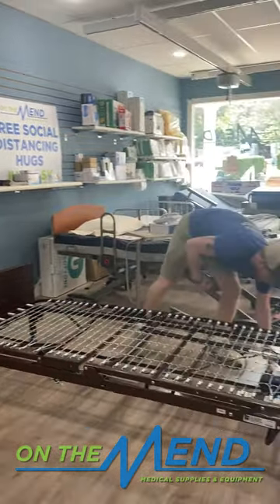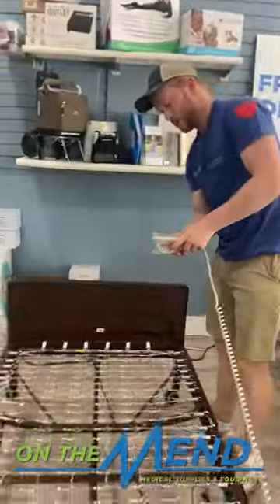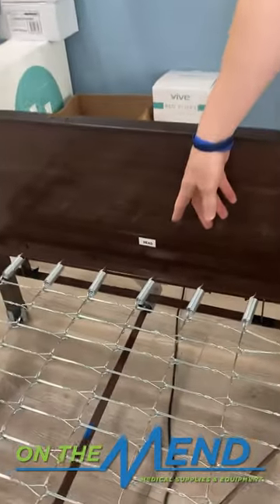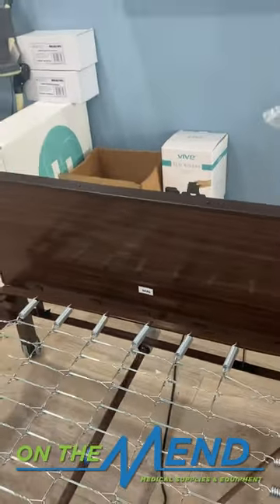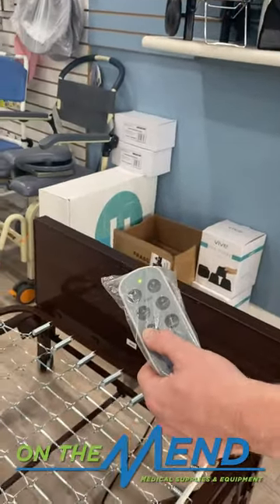If you come over here and look right here — down here, you can see it's currently not locked in, but once you start to move the bed, it'll lock itself in. I like to tell people just go down to get everything set up. Once you know everything's locked in, then you can start to raise the bed up and down.